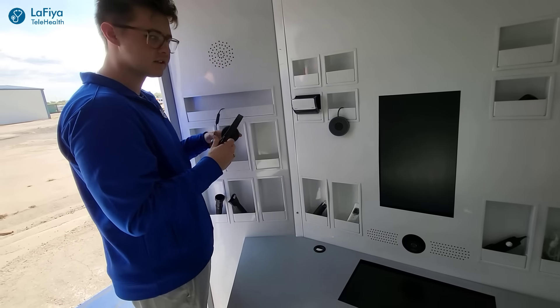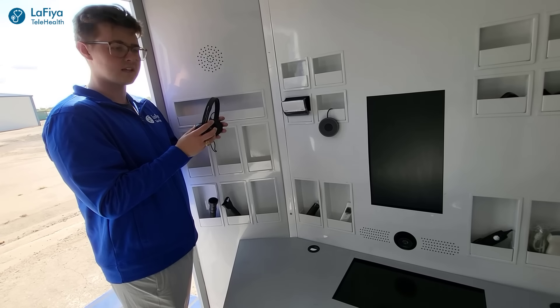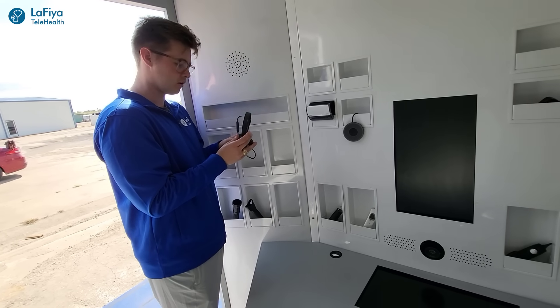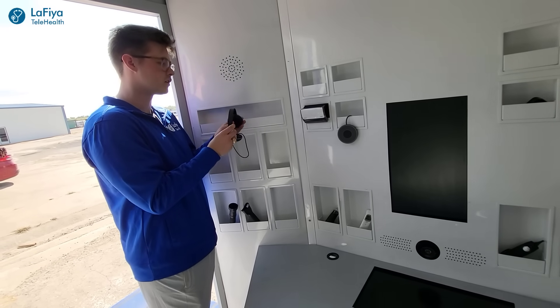If the patient wants to have a private conversation with the doctor and doesn't want anyone outside the medical kiosk to hear them, they can put this headset on. This headset is equipped with a microphone to communicate with the doctor wherever they might be, and it will also allow them to hear the doctor clearly.